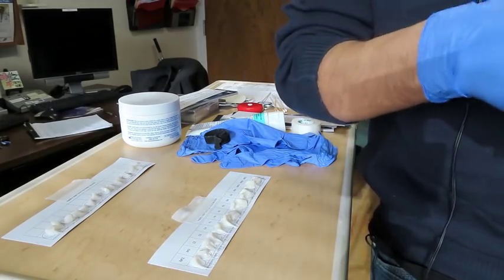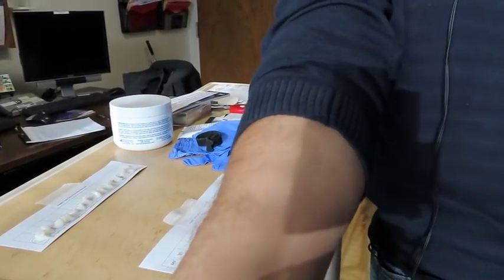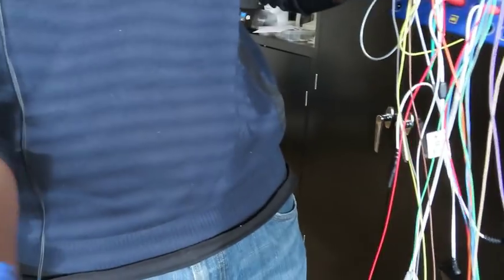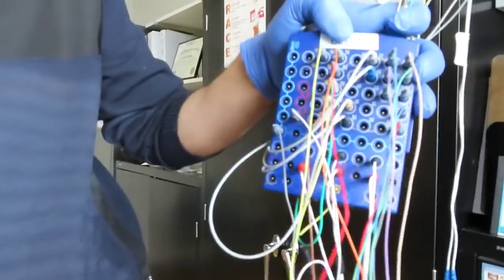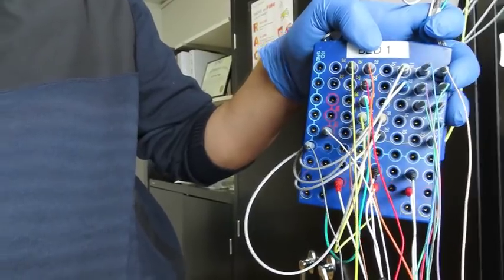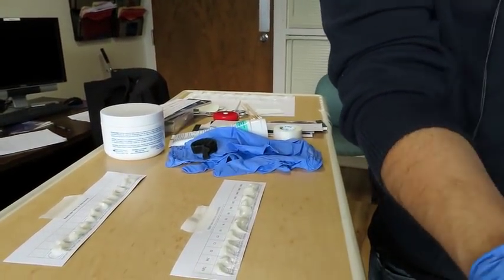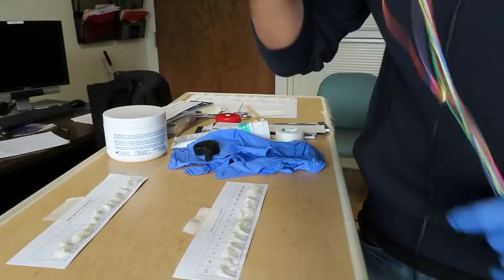Okay, and normally you're dealing with a certain head box that has all the montages and all the inputs. So you'll have a graph to tell you where everything goes. But this is what you're dealing with, all these little wires here. So dealing with all those wires and trying to locate where they're going and interacting with the patient is not a very easy thing to do. So it's very complicated sometimes.